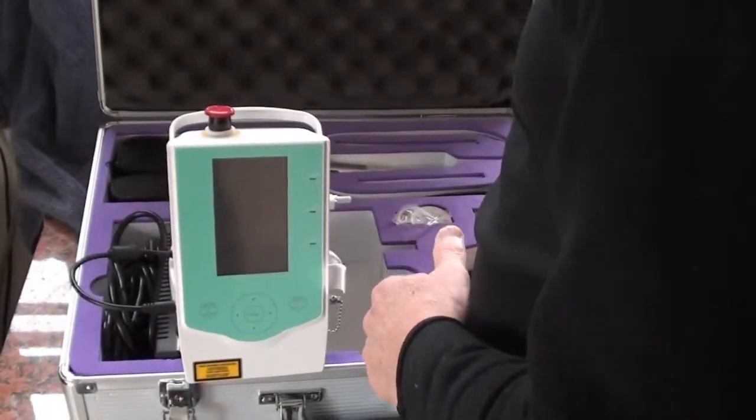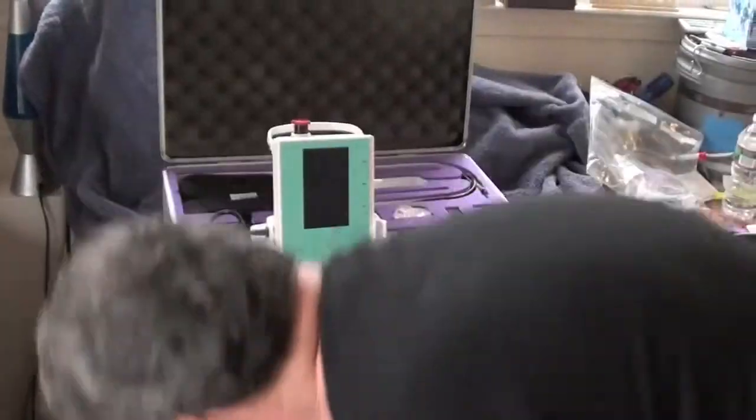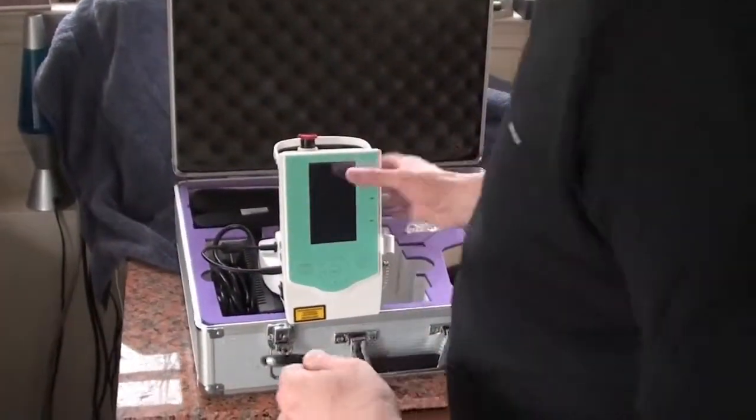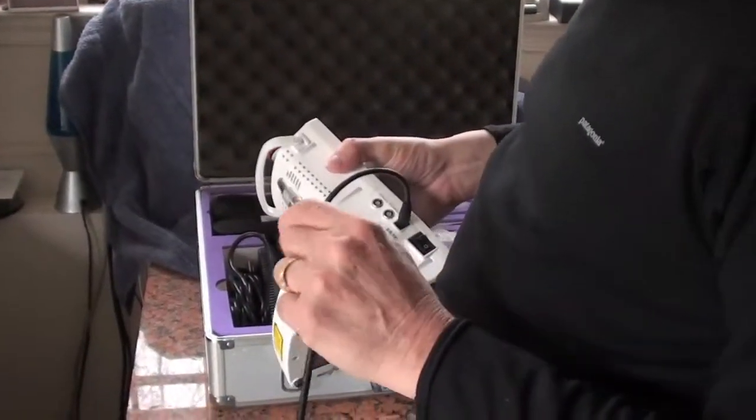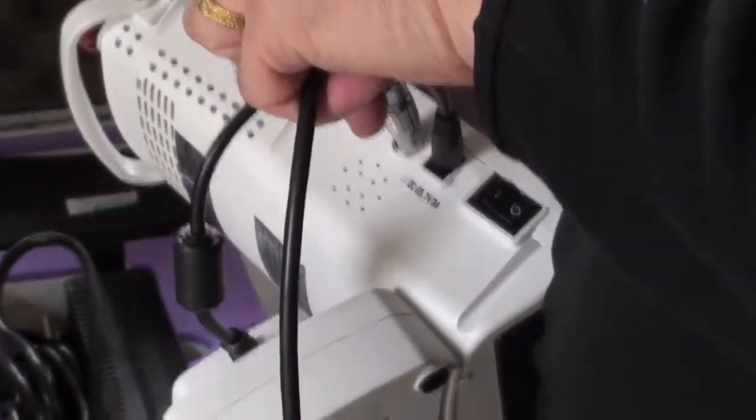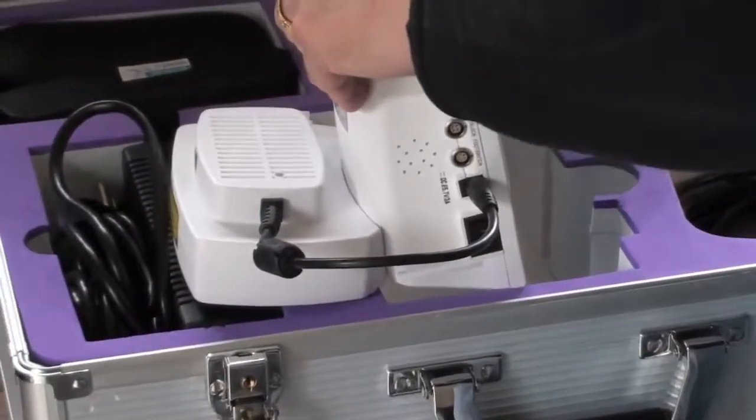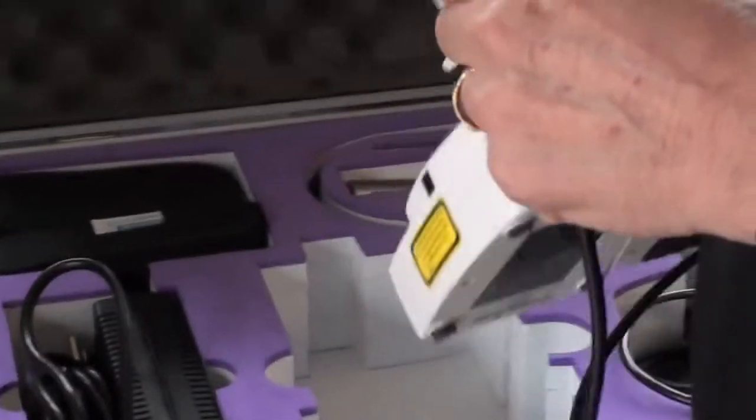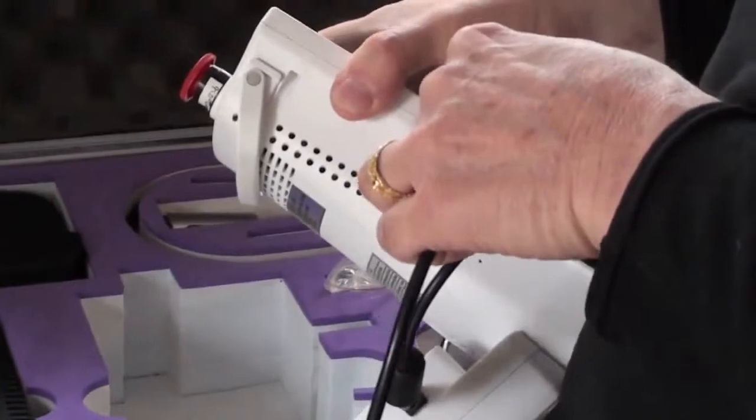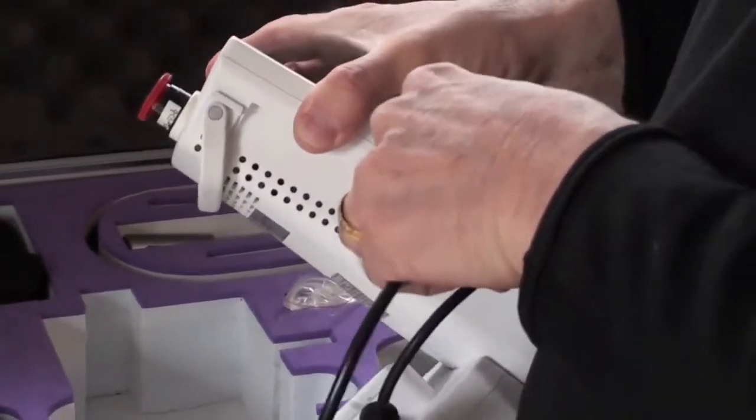And then here's the foot pedal. It's the same foot pedal. Now we're going to use the foot pedal. It's all on the side. Remember it's 12 o'clock high. It's not the same foot pedal. We'll take the foot pedal, this one. So the laser has its own specific foot pedal. 12 o'clock high, you stick it in.